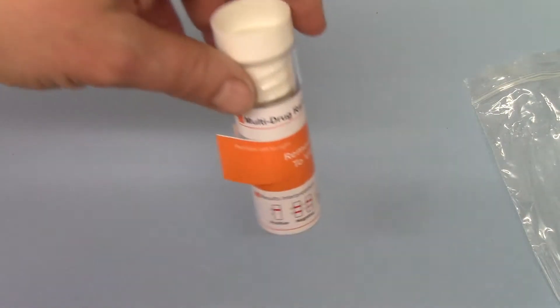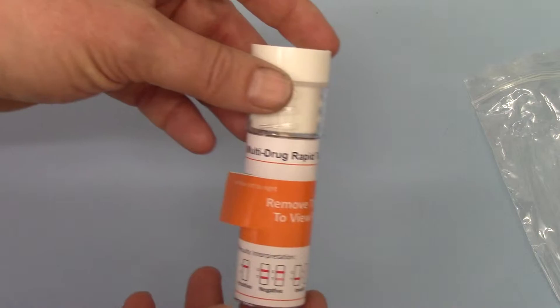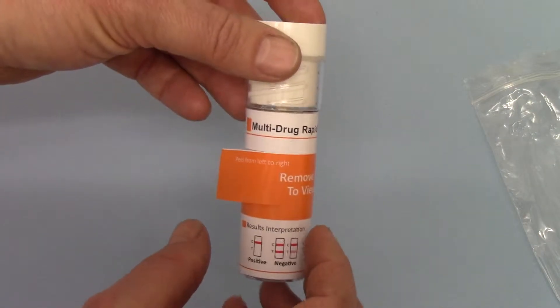Welcome back to this demonstration of the DSD-877, six drug plus saliva alcohol test for saliva.